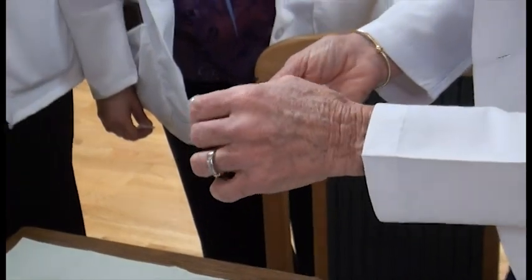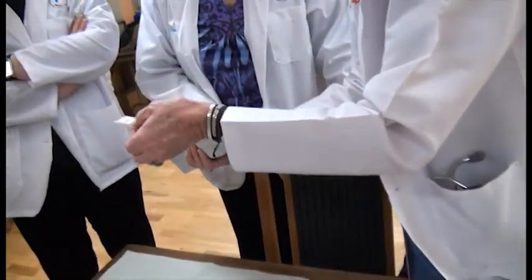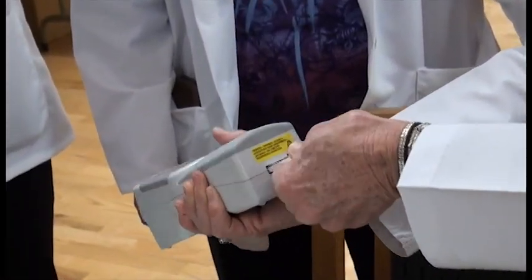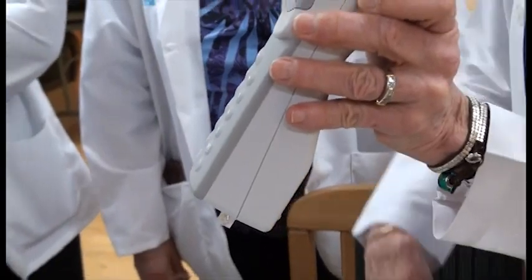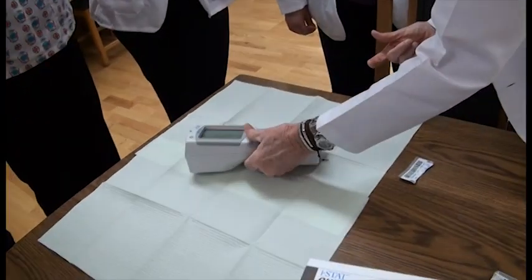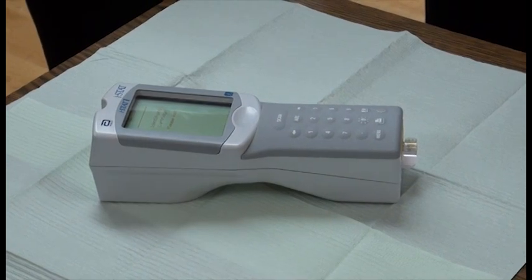You will know — I will show you. Once you do that, you're going to take the cartridge and put it in here just like this. Now it says identifying cartridge. That takes about a minute and a half. It wants to make certain that this cartridge that we're using matches the software update that I have put into the machine.